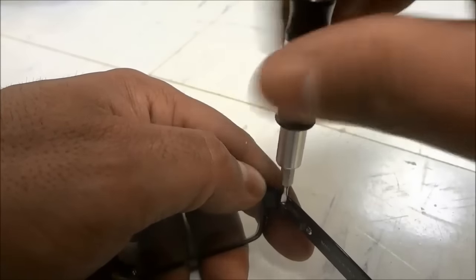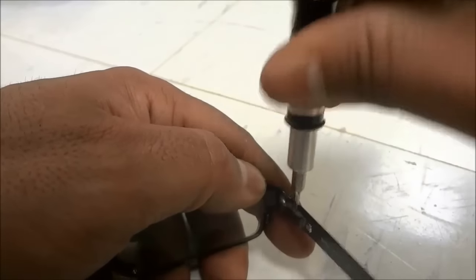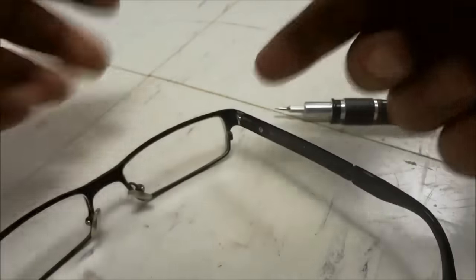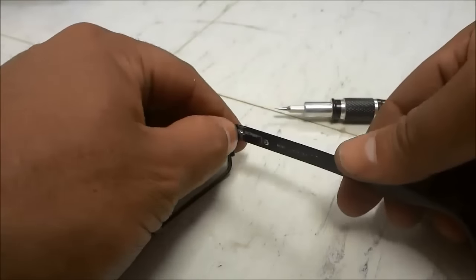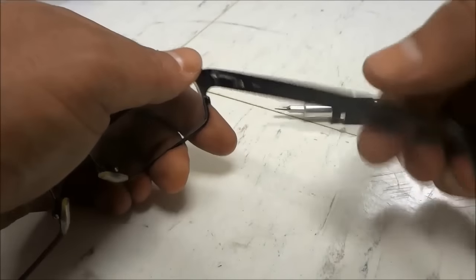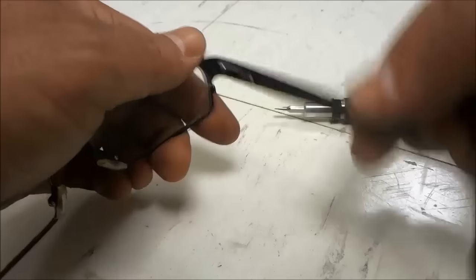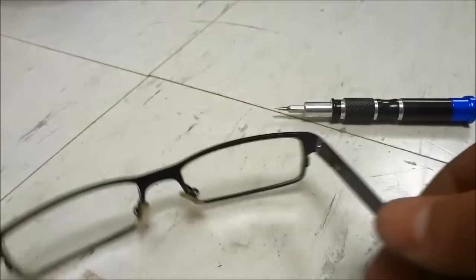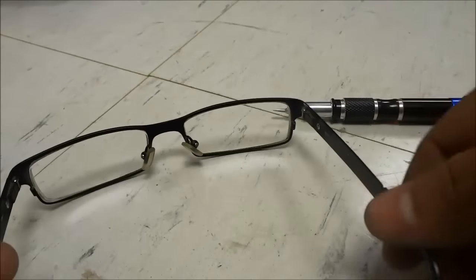Just going to finish it up like that. Now that I have tightened the screw as much as I could, you can see that the arm no longer moves. I mean, it's moving now but the entire frame of the glasses is moving, but it doesn't move separate from the glasses and it's no longer wobbly or loose.